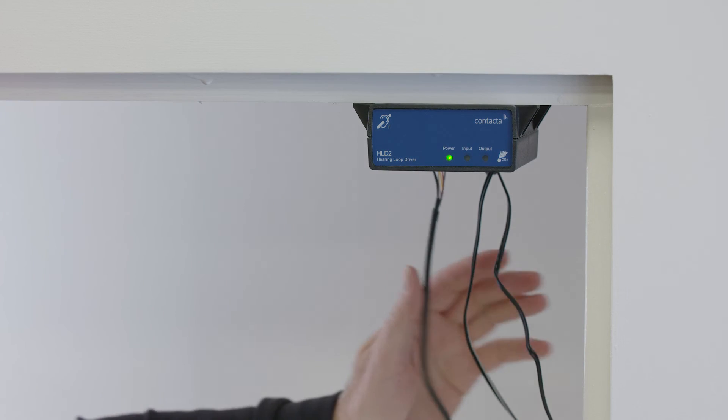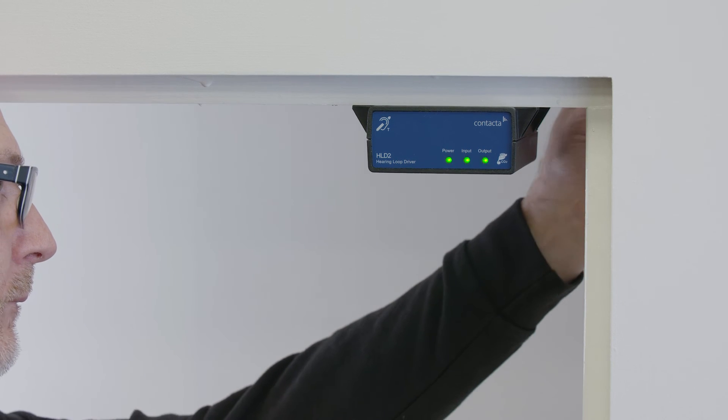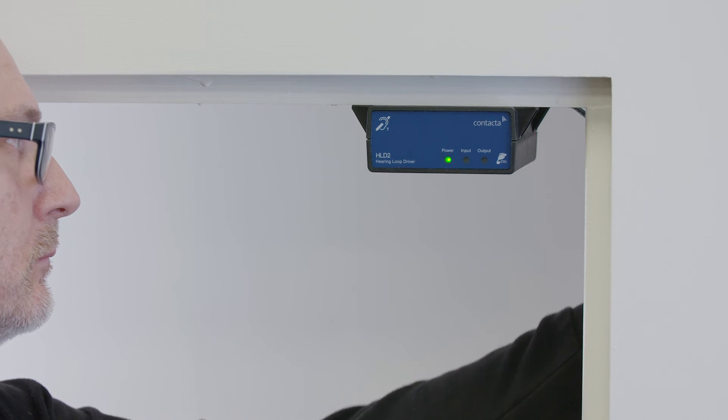Route all cabling securely fixing cables into position using provided cable clips or other suitable fixings.